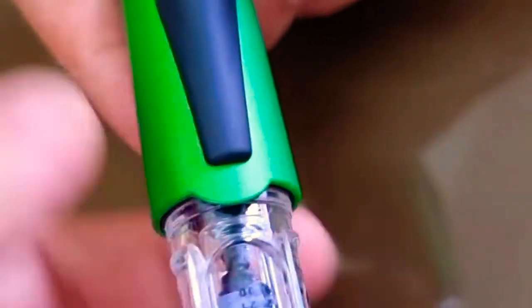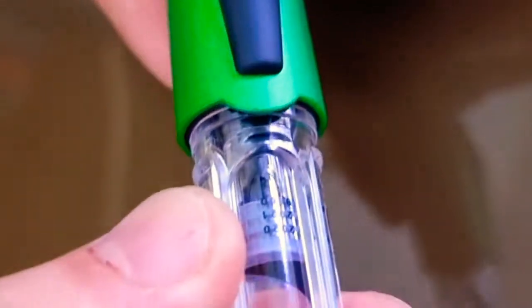So you were twisting the end, this one, right? Yes, you were dialing up the numbers. And then you push the dispense button down to push the plunger forward. Yes, that's correct. It's now in contact.